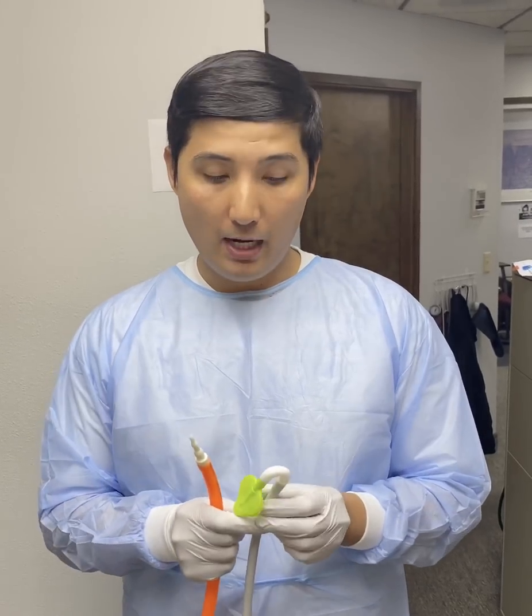We're also going to do this with a slow-speed saliva ejector that is curlicued around the patient's cheek — a lot of hygienists like to use that to try to get that hands-free effect. You can see in the video that Relief is far superior in removing aerosols than using a slow-speed saliva ejector. Keep in mind that Relief has a U-bend which is equal length, and that greatly helps evacuate saliva, water, debris, and aerosols.